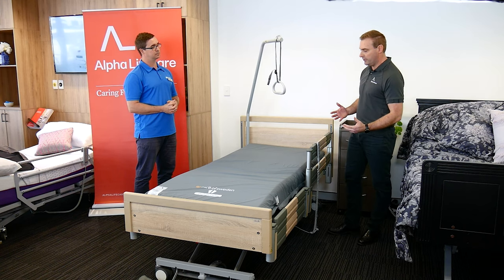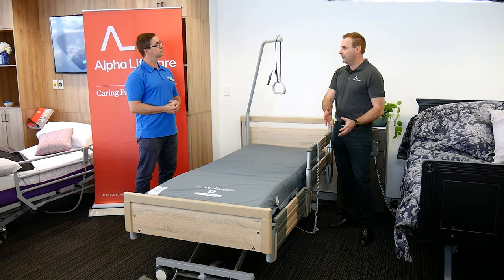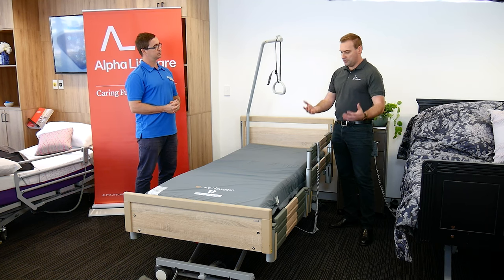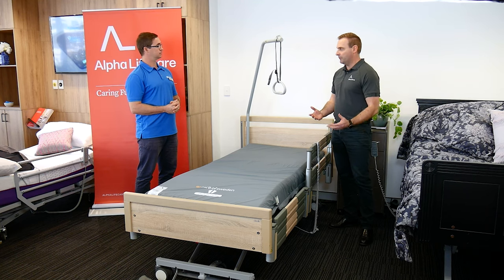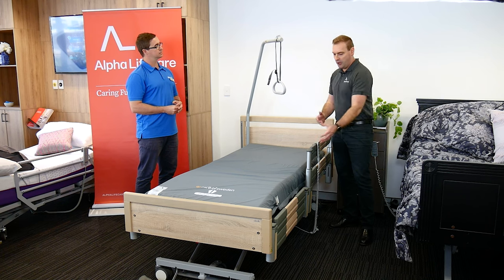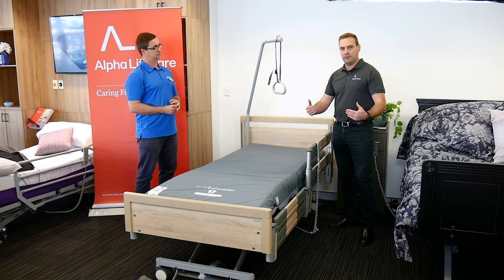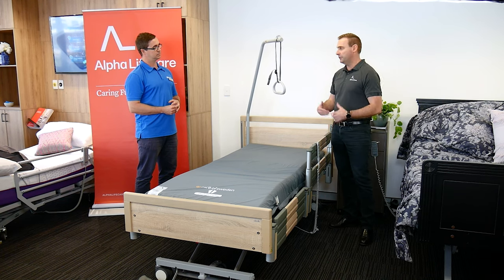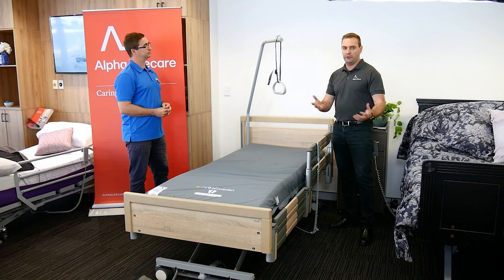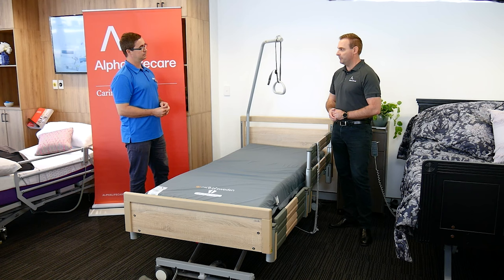Some studies have shown that lots of falls actually happen with the client standing up, then taking some steps and falling due to loss of balance. So at least with a solid rail, you can stand up and hold on to something nice and stable to stabilise yourself, also giving time for a bed alarm to go off and for carer staff to come and prevent them from falling.